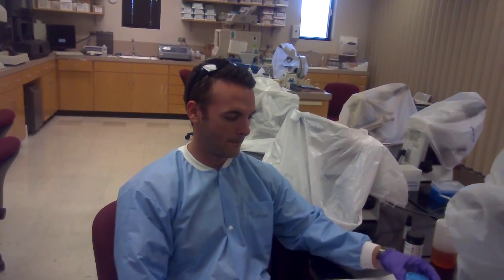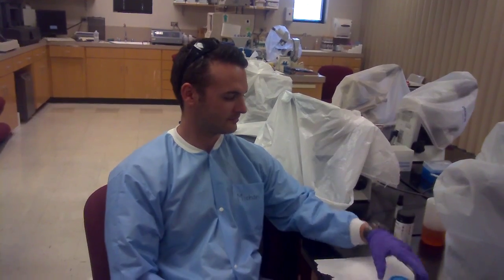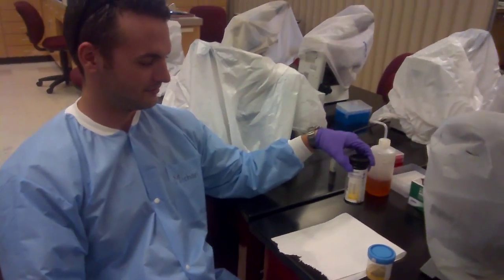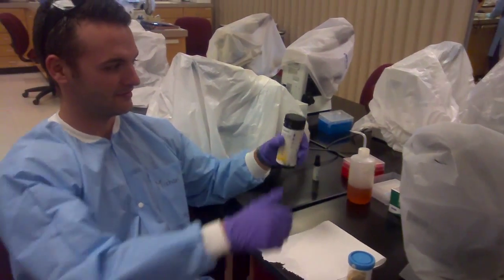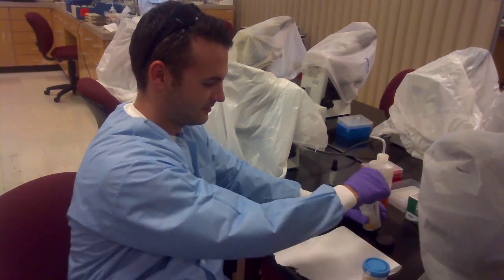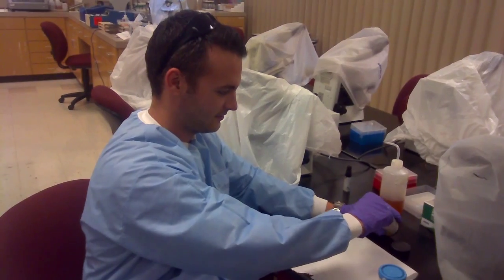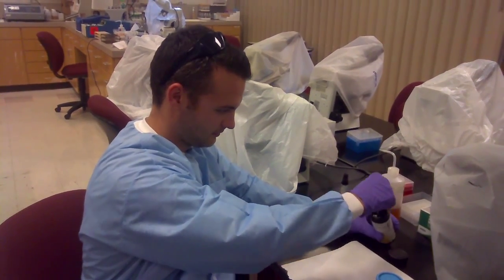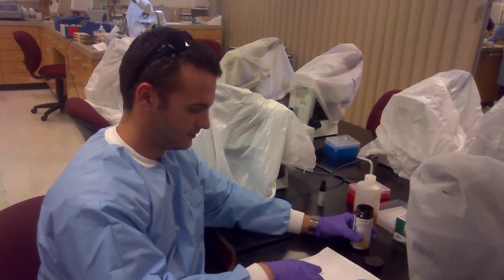Okay, now Michael is going to demonstrate the proper technique for doing the test. Now he is going to unscrew the cap, take out a strip, put the cap back on the bottle.